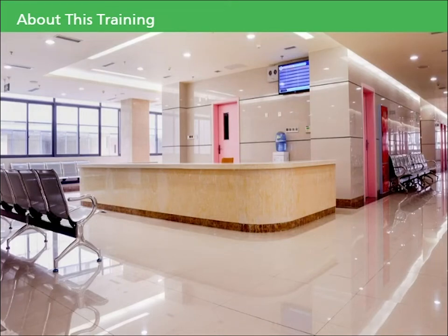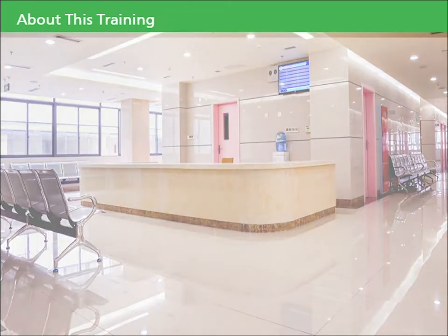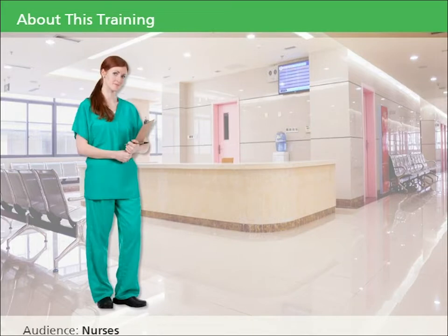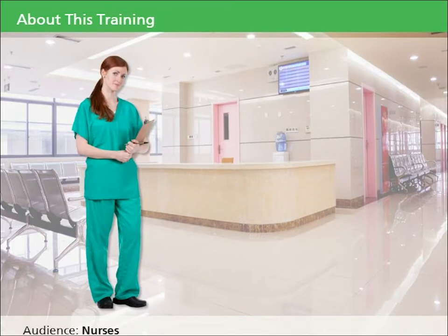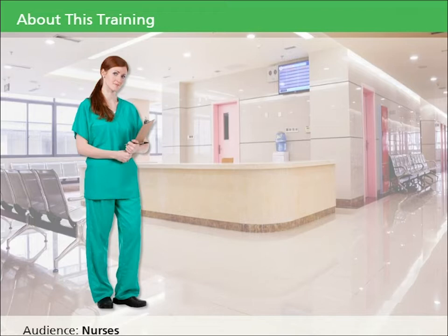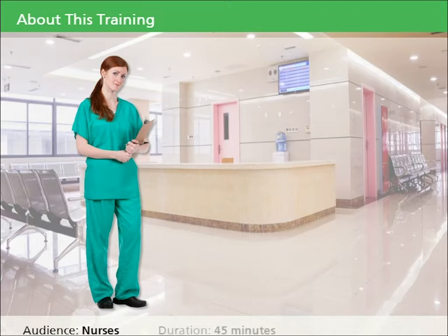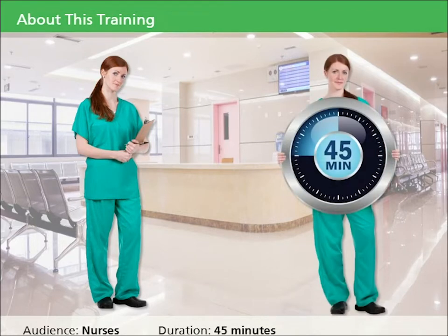Welcome to the Patient Care in a Non-Profiled Environment training. This course is intended for nurses who will be using OmniCell cabinets to remove, return, and waste medications for their patients. The course will take approximately 45 minutes to complete.